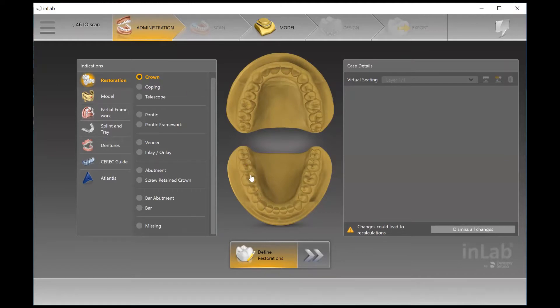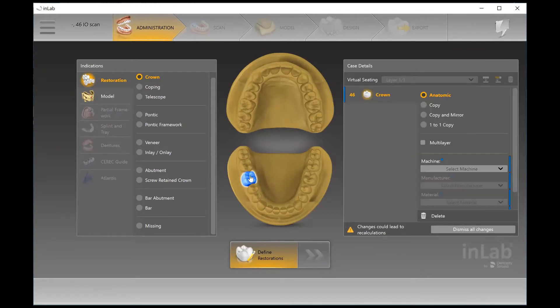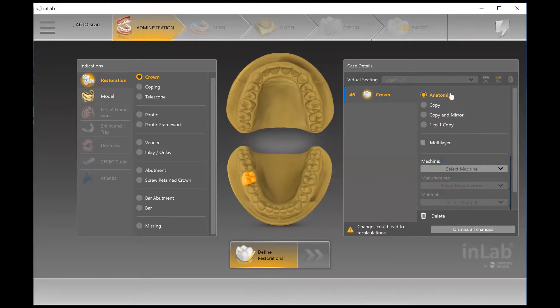All that's left to do here is to identify what tooth on the odontogram. As soon as we do so, on the right-hand side are the case details. The case details will identify what tooth we're working on, and there are a couple of additional items in terms of how we can design this crown.